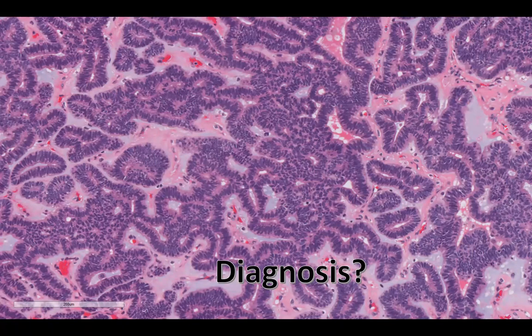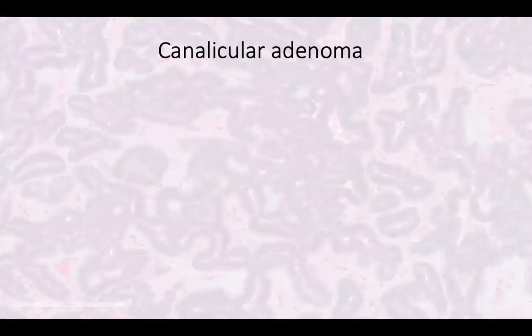You'll get canalicular adenoma. Yes, well done. Who was that? Very good, Yamin. Very good. Nice. Yes, Yamin, this is canalicular adenoma. That is very impressive. You're on my Hall of Fame list forever. Very well done. So yes, this is canalicular adenoma.